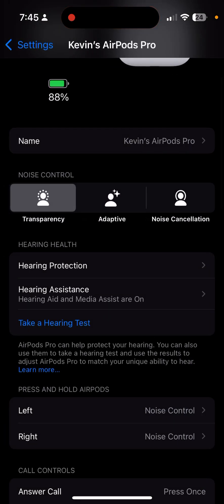If they're not, you're going to have to go through the setup steps, and please watch through to the end because I'm going to demonstrate exactly where most people go wrong with setting this up. So you have this set up, your hearing aids work fine, and then all of a sudden they stopped working. You can try rebooting your phone and all the normal things, but I'm going to show you a couple of quick things to check.